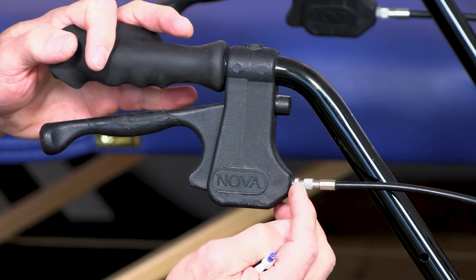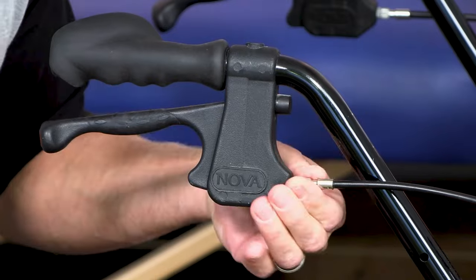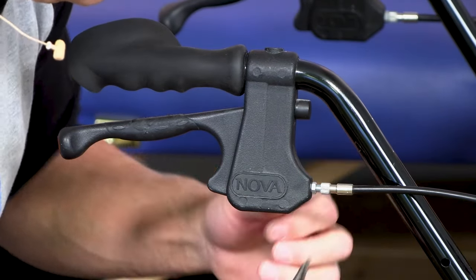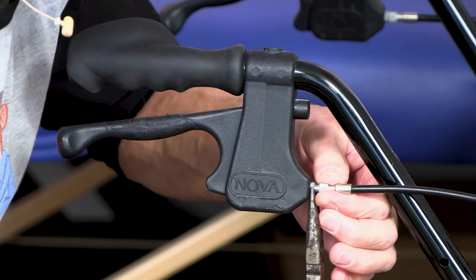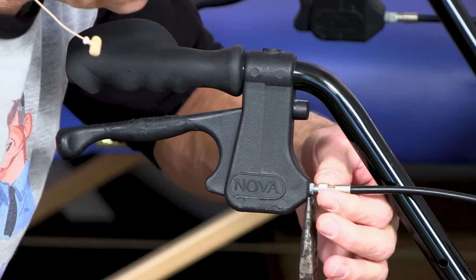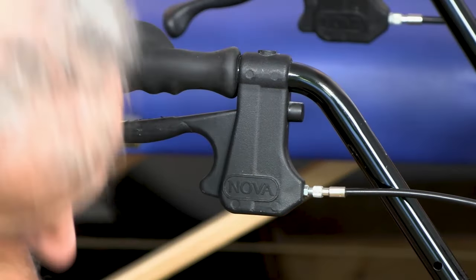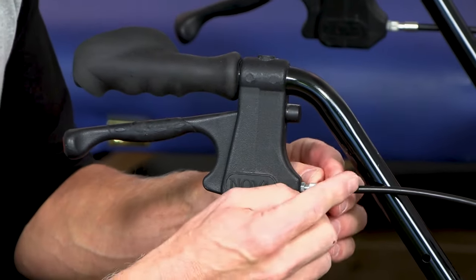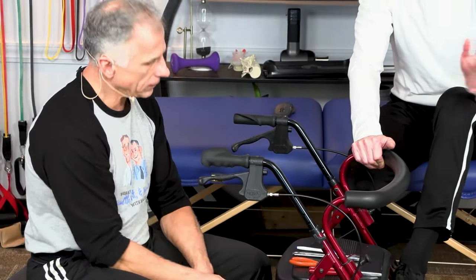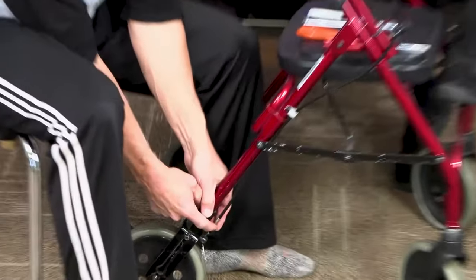It is important that you tighten the lock nut. Grab it with the needle nose — or if you have an open-end or combination wrench, that works fine. Lock it there and we're done. Now, there's the exact same mechanism down here on the lower part. If you get the top one all the way out and the threads start coming out of the plastic mechanism, you can't thread it back in and it's still not working. So if it's not working at the top, tighten that one up, lock the nut, then go down to the one below and do the exact same thing.